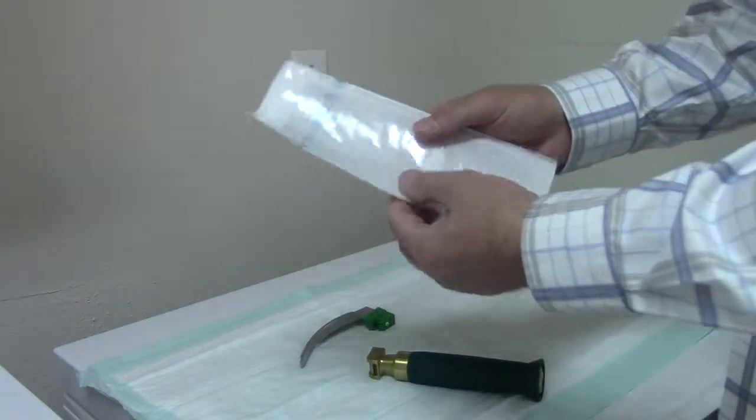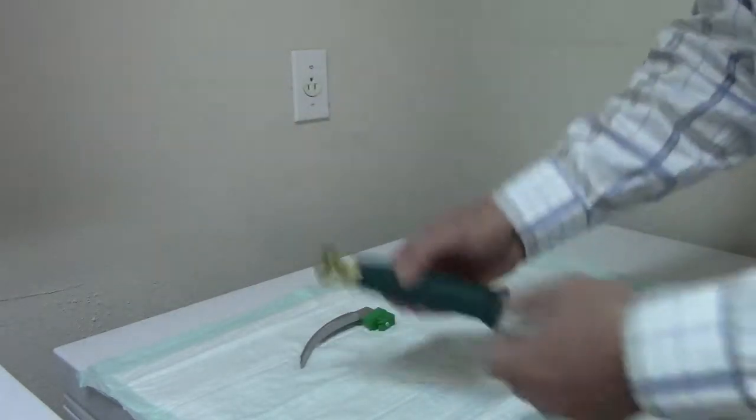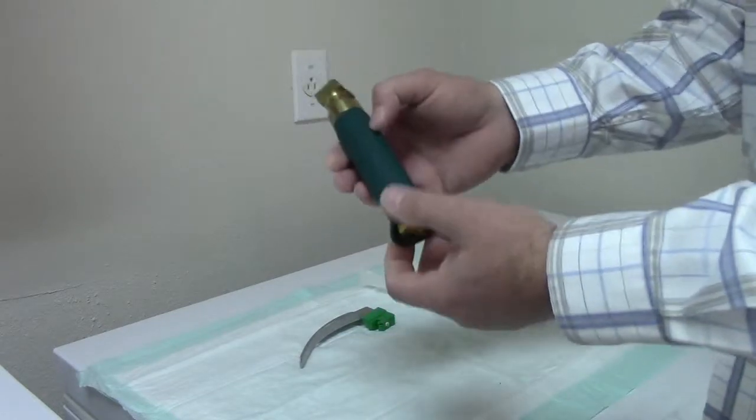Greetings! This is a short presentation on a barrier you can use to prevent cross-contamination on your laryngoscope handles.